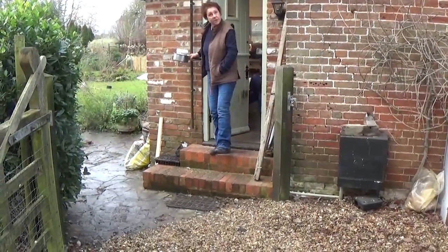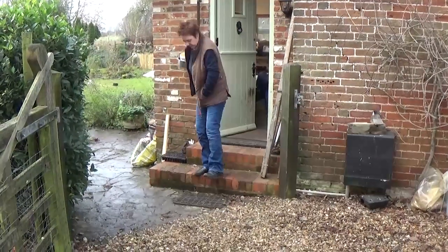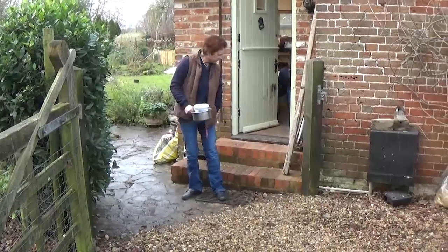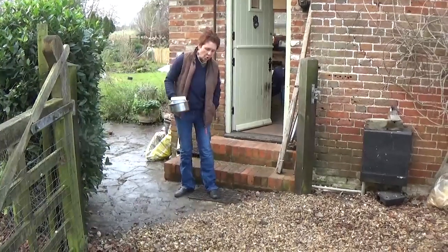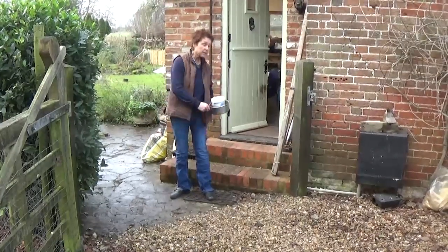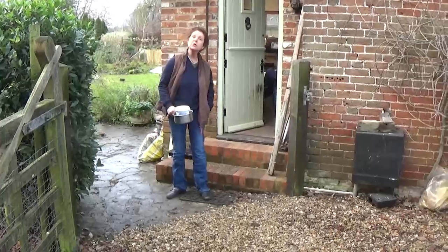As you can see, I live in a challenging environment. These steps make for difficult walking, except the FES allows me to have a long period between raising my foot and pushing it back down again, which means I can negotiate the steps. As you can see, they're fairly steep, but I can negotiate them safely.